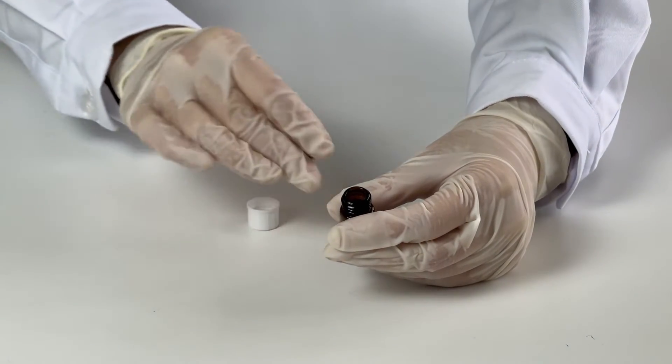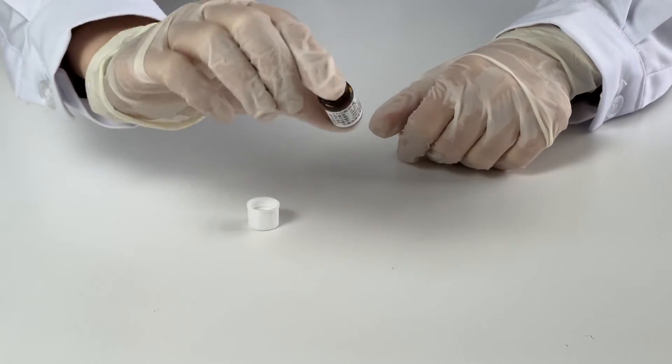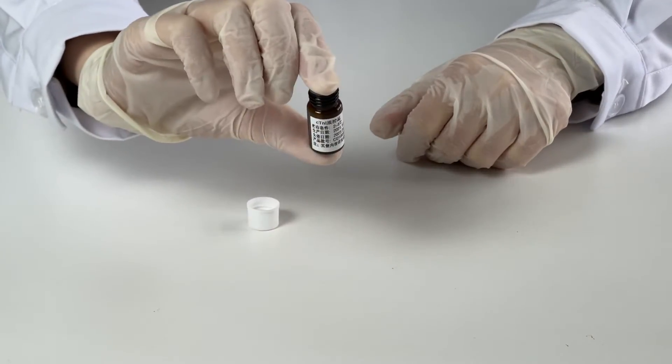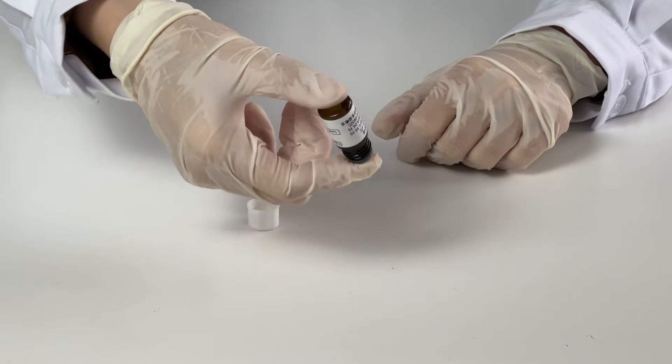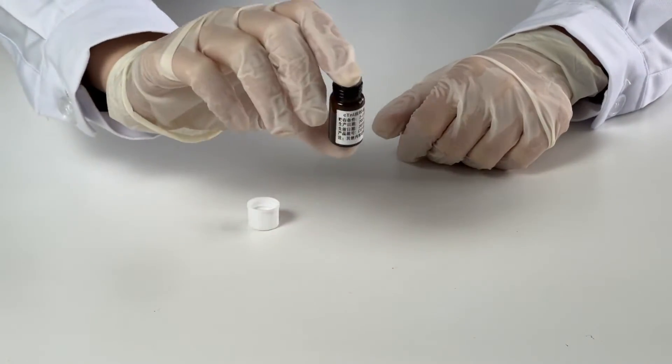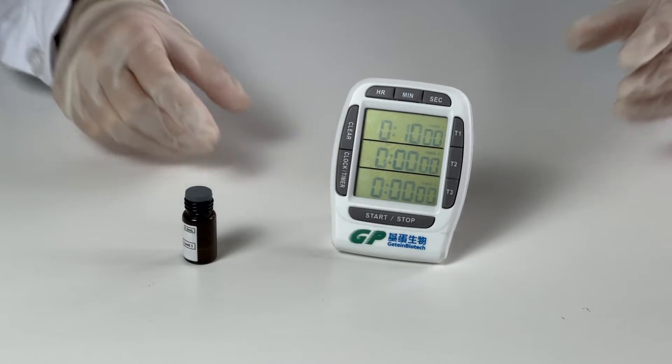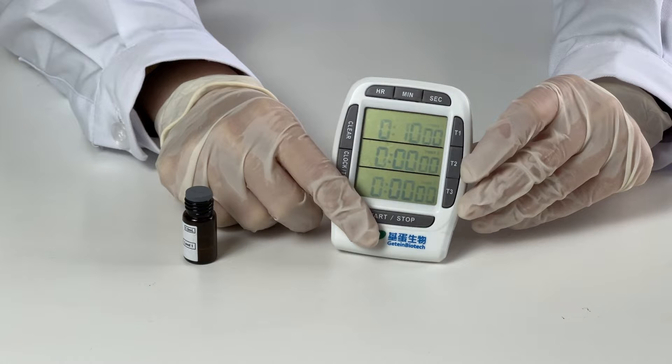Close the vial. Mix gently until all contents are dissolved completely. Let the mixture subside for approximately 10 minutes.